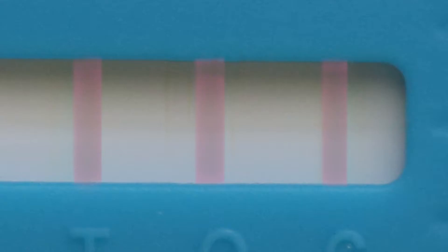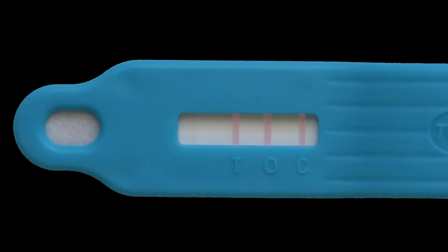In the case of a positive result, you will see three lines form. Any development, regardless of intensity, is considered a line.